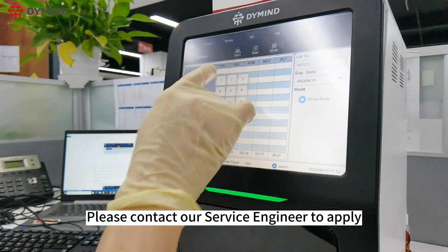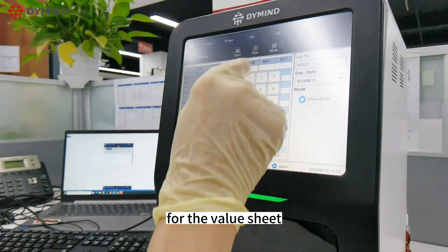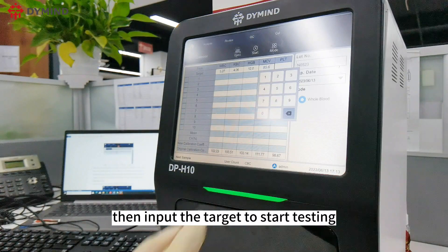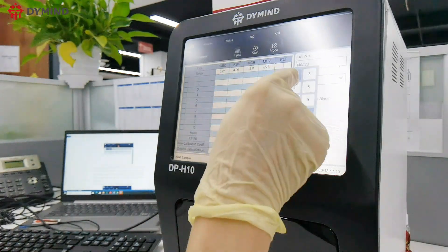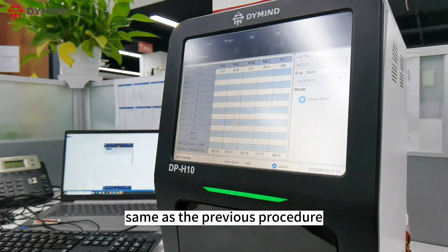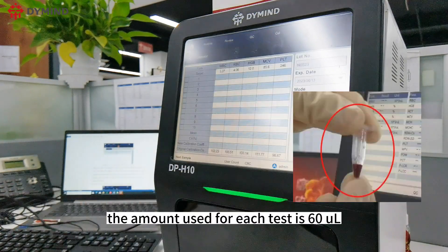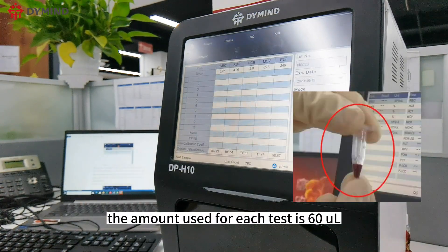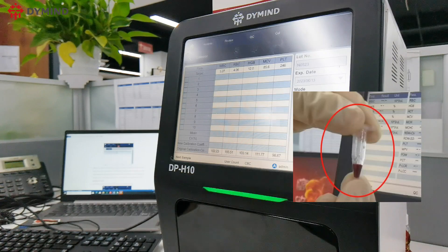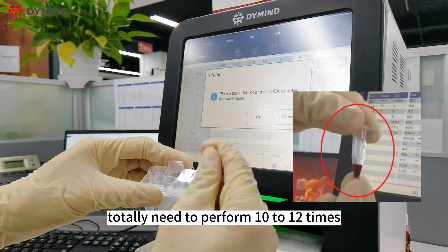Please contact our service engineer to apply for the value sheet, then input the target value to start testing. The blood collection process is the same as the previous procedure; the amount used for each test is 60 microliters. You will need to perform 10 to 12 tests in total.